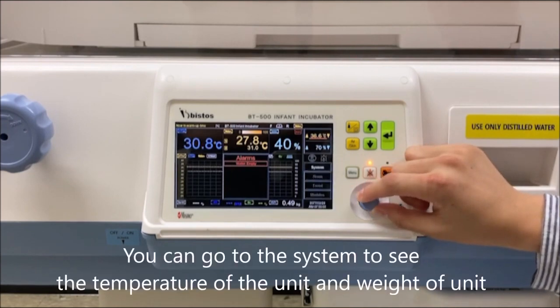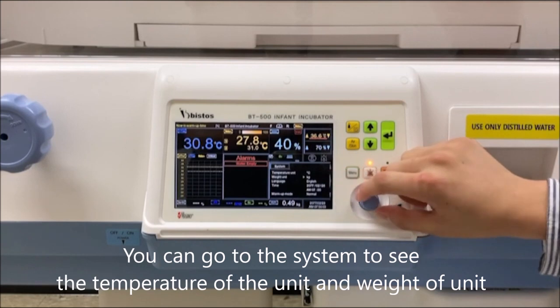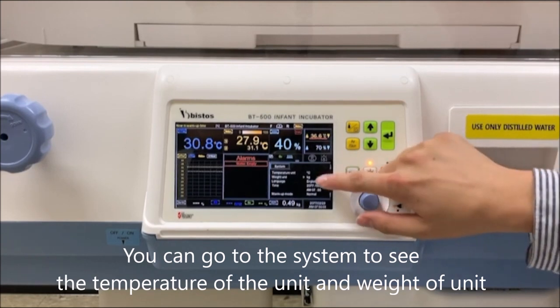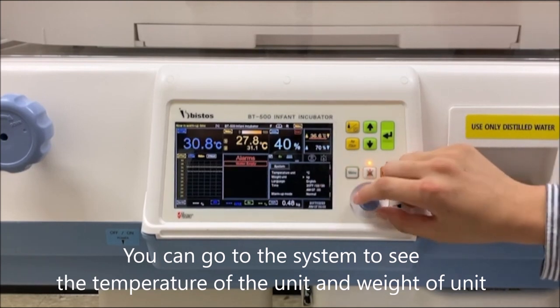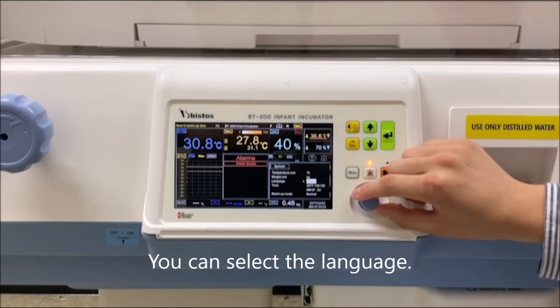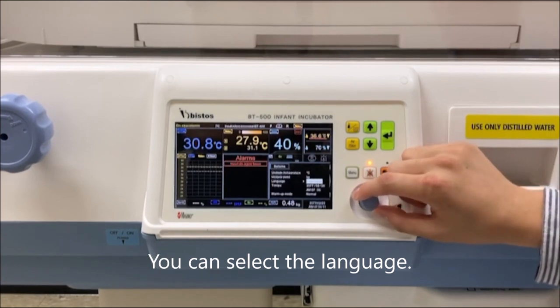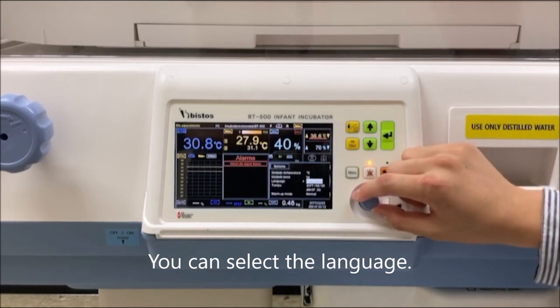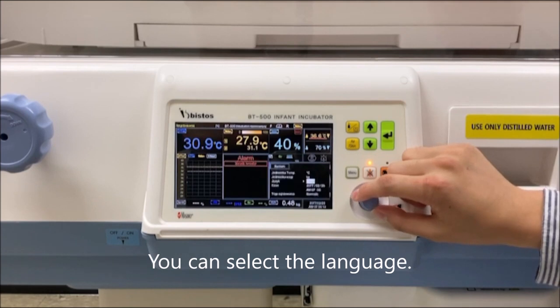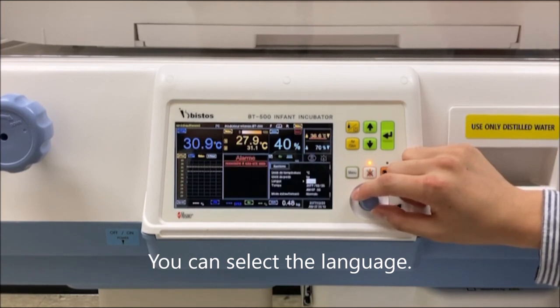You can go to the system to see the temperature of the unit, weight of the unit, and you can select the language from here: English, Spanish, Portuguese, Chinese, Polish, and French.